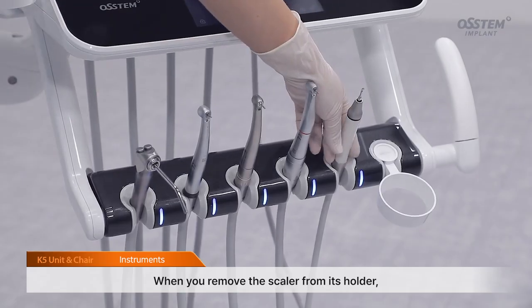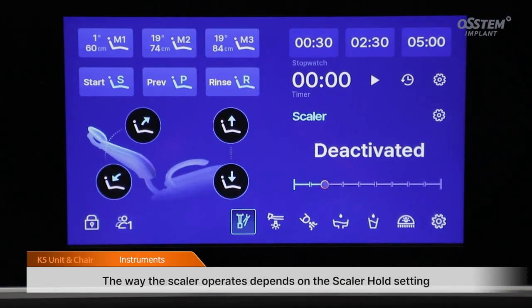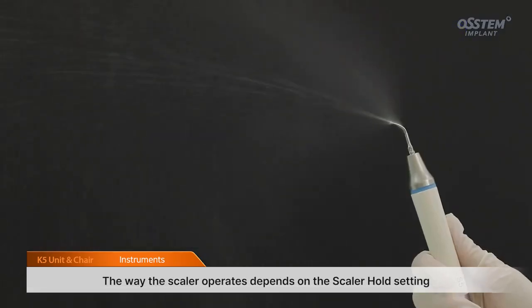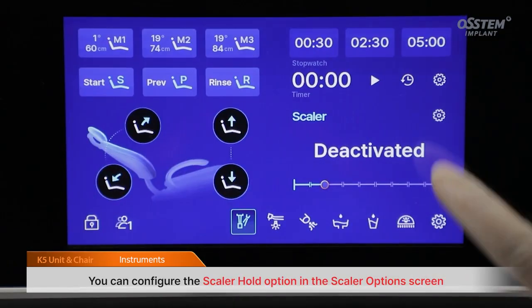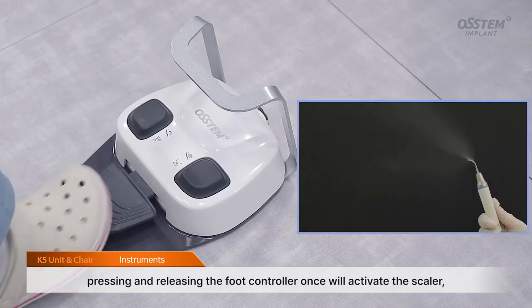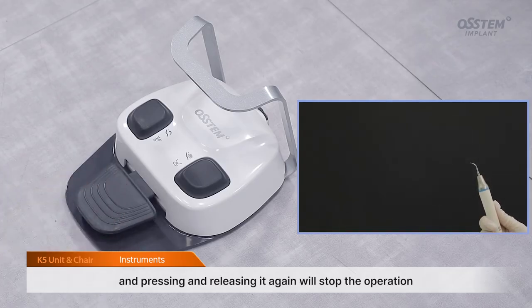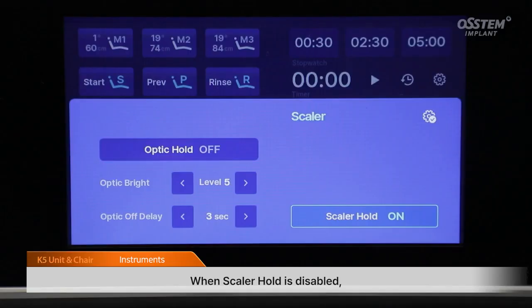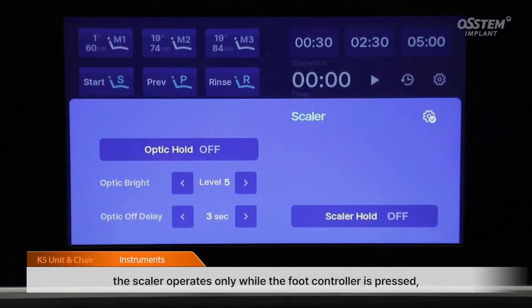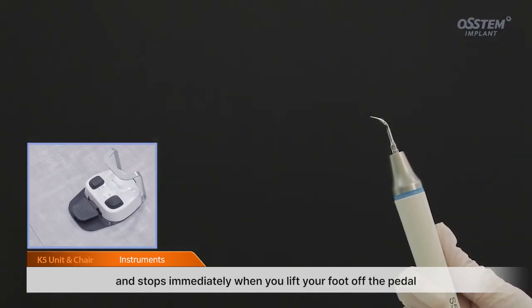When you remove the scaler from its holder, the table LCD displays information related to the scaler. The way the scaler operates depends on the scaler hold setting. You can configure the scaler hold option in the scaler options screen. When scaler hold is enabled, pressing and releasing the foot controller once will activate the scaler, and pressing and releasing it again will stop the operation. When scaler hold is disabled, the scaler operates only while the foot controller is pressed, and stops immediately when you lift your foot off the pedal.